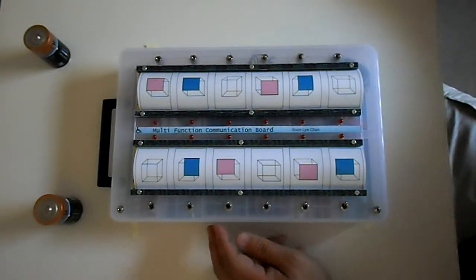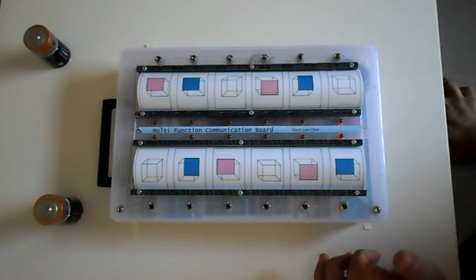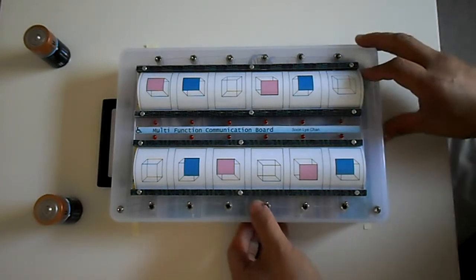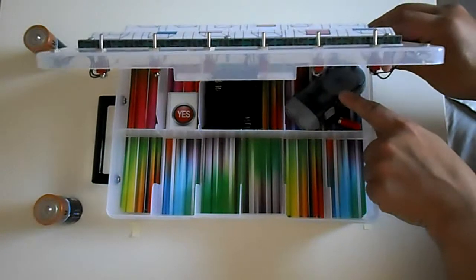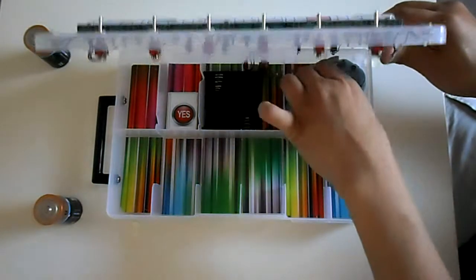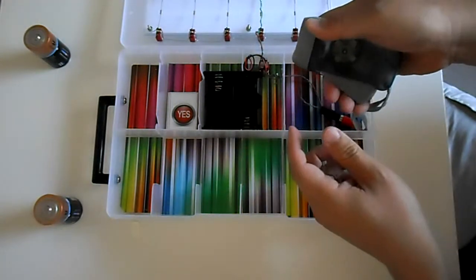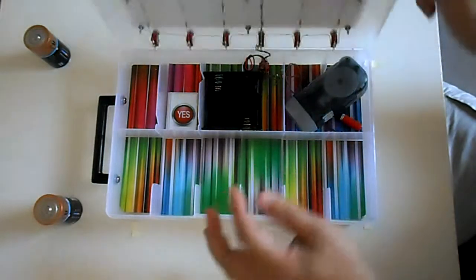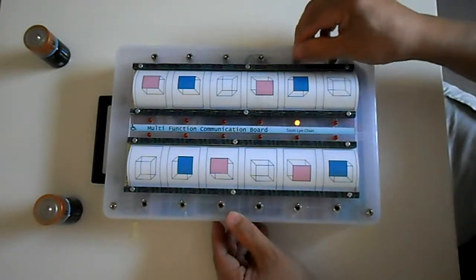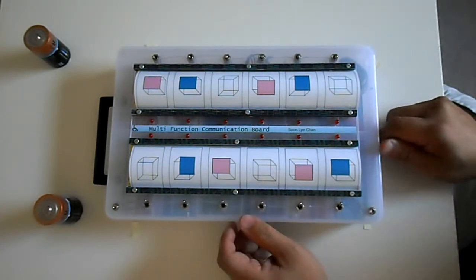And the reason is, this now is ideal for countries where batteries are expensive or there's unreliable power. The device is now running off a handheld generator. And when it runs out of power, you just take it out, squeeze it, and that's it. It charges itself already with more power. So in other words, this is batteryless. It would last virtually forever.